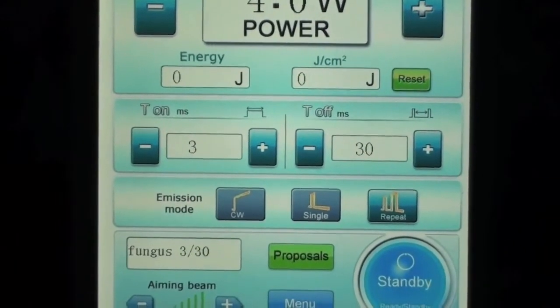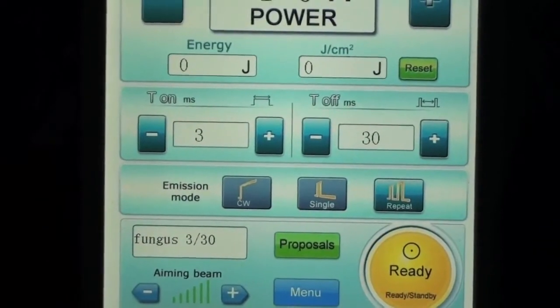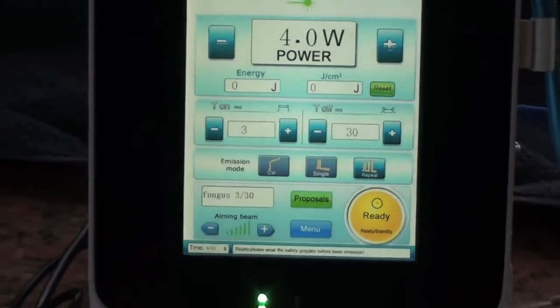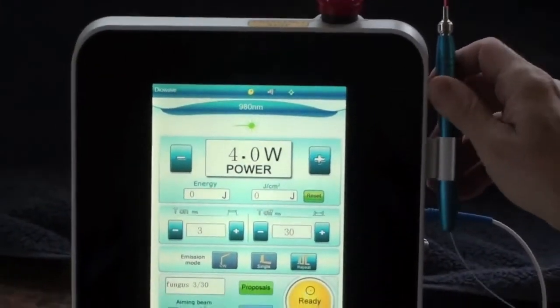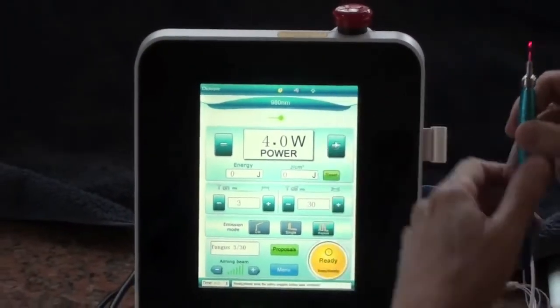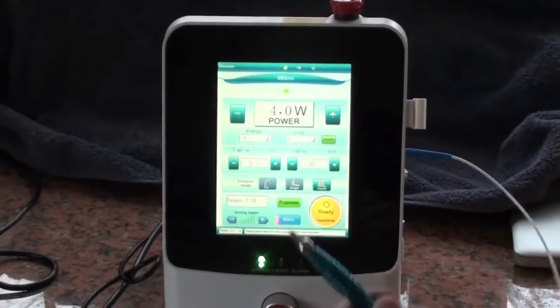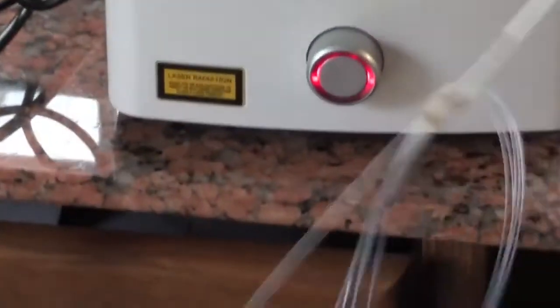If you want to use it, you turn it on ready. That will turn it on. You lift up the foot pedal. In this case, we're using the hand piece. This happens to be a 400 micron and there's the beam that's on. If you want to start it on, you just press. It should press it down, hold up.